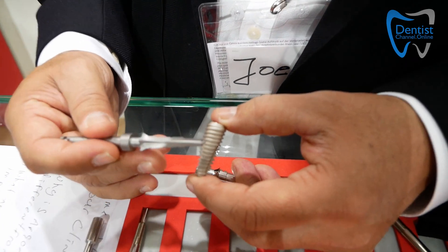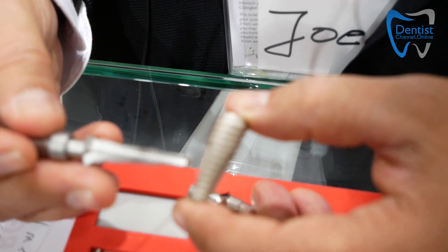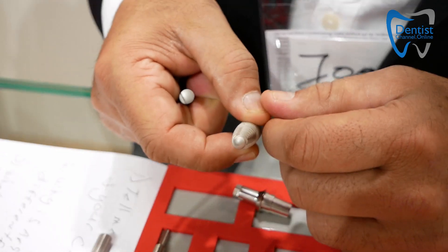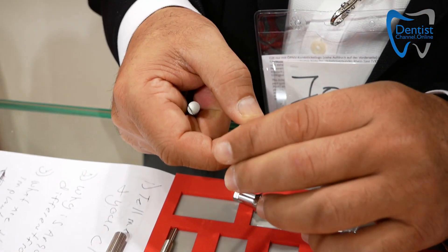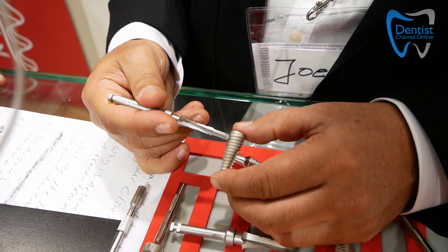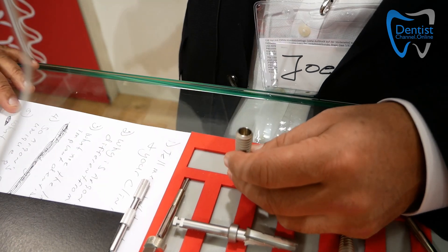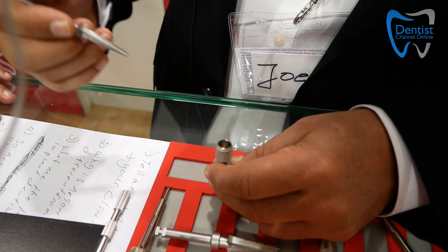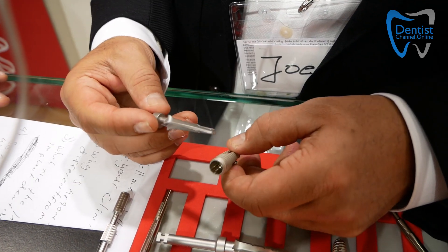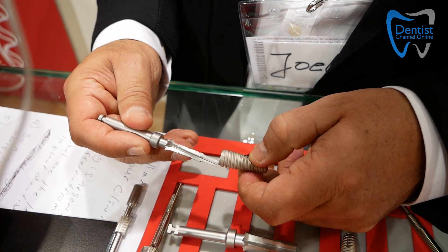It has new apical aggressive threaded implants, and it also has your self-tapping portion. It has a blunted apex, which is absolutely key for your sinus — when you're doing sinus bumps, etc. It has square type threads up here, however, for nice compression of the bone, which is typically trabecular bone. Trabecular bone likes compression. But the most important honestly is your sloping shoulders here.